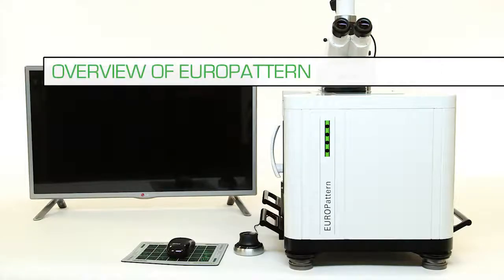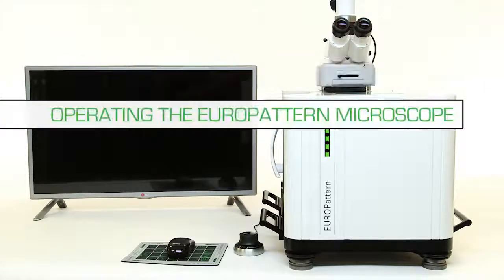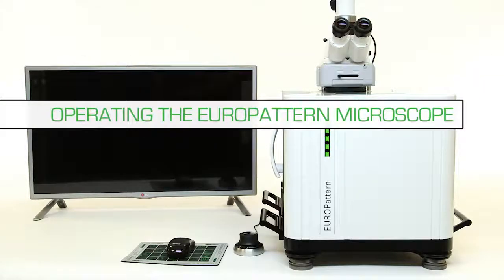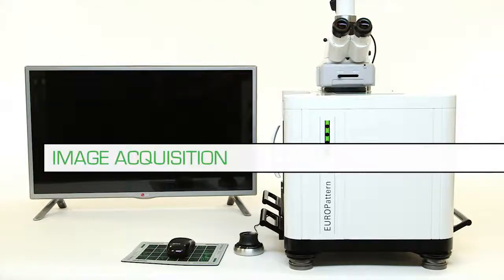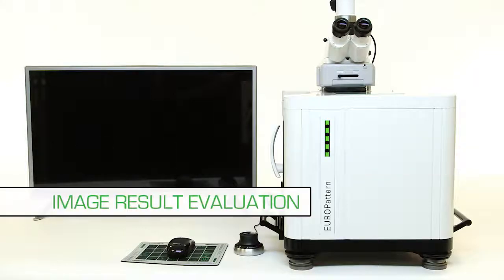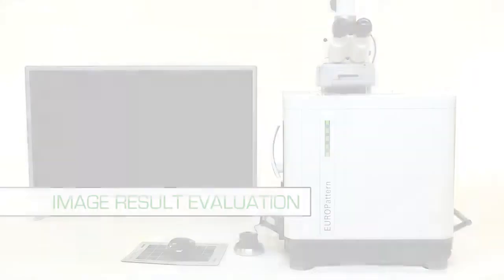An overview of the Europattern system, operating the Europattern microscope, image acquisition, and image result evaluation.